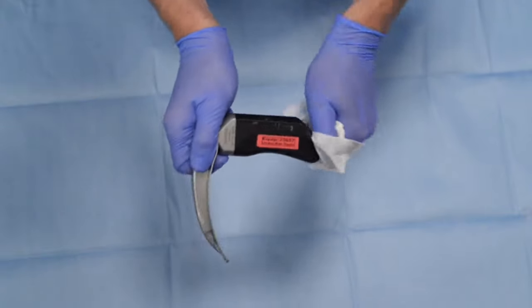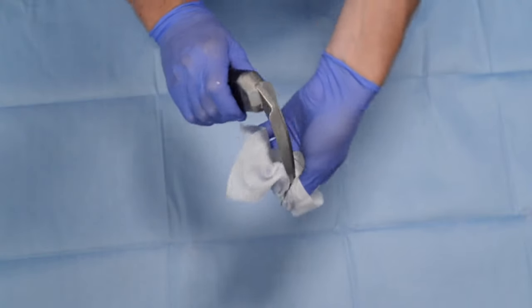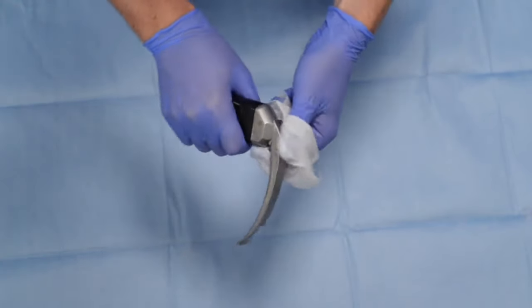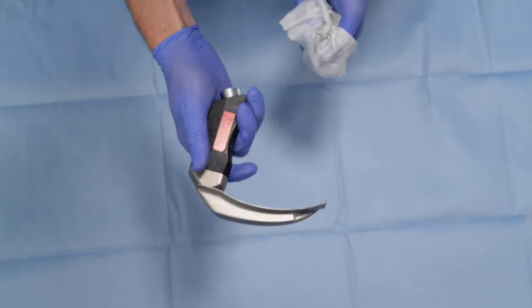Once this stage is complete, your laryngoscope blade is ready to use on your next patient.